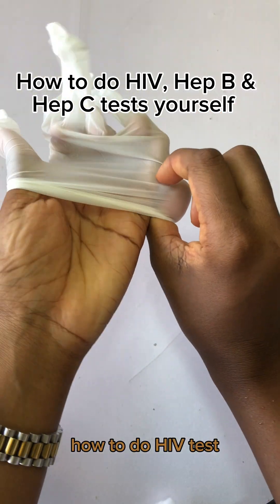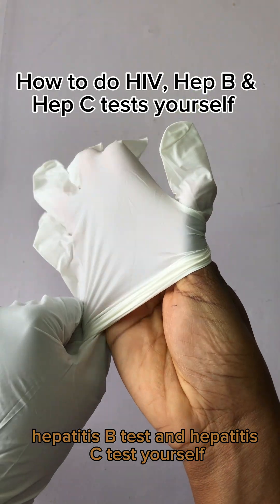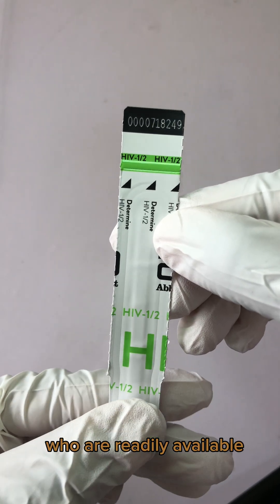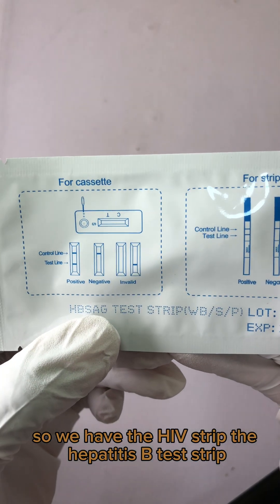How to do HIV test, Hepatitis B test, and Hepatitis C test yourself. We're going to be using these strips that are affordable and readily available. We have the HIV strip, the Hepatitis B test strip.